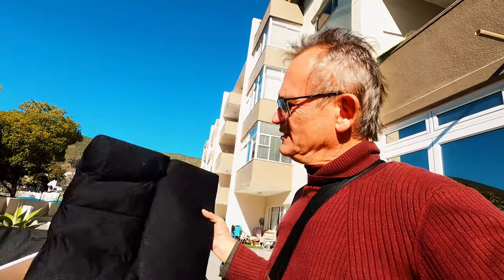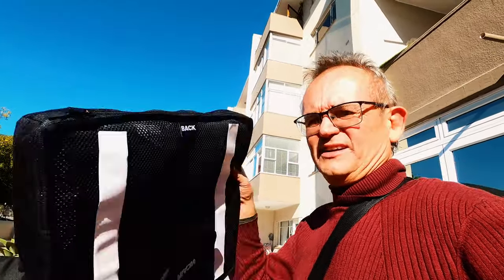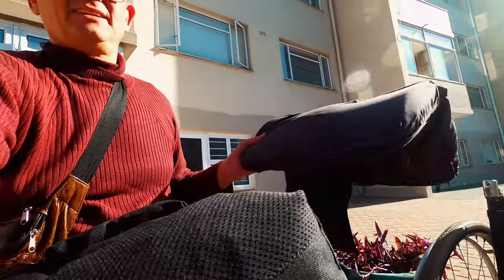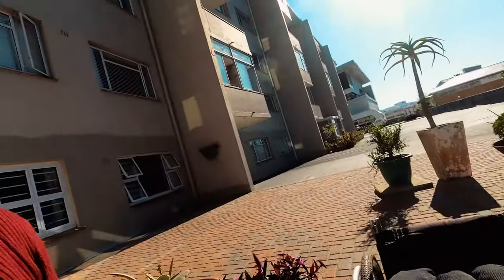Big, big upgrade as you can see. It's again a ViCare Active. If you just compare the sizes, thickness, physical size — much the same. I'm just very tough on equipment so mine is taking quite a beating. I camp a lot and I'm extremely active and move around a lot, so the chair does take a beating.